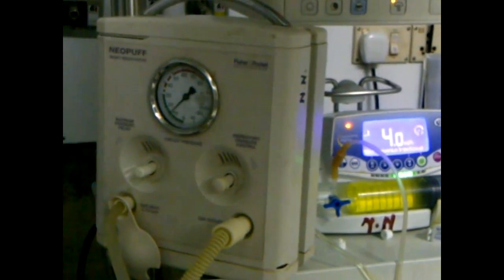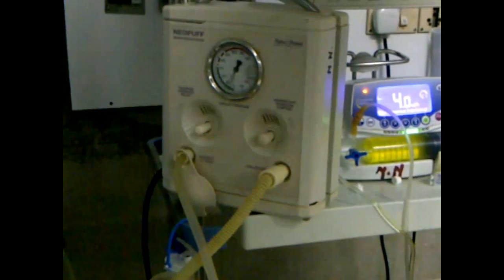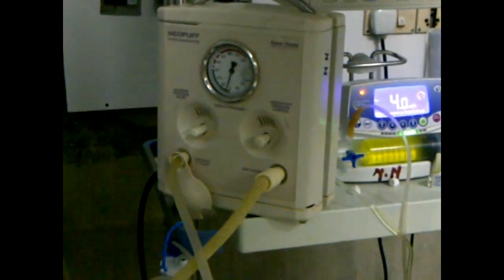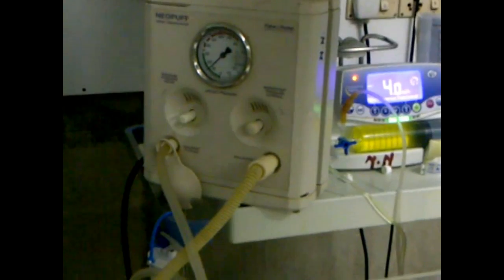On the top of this instrument you can see a manometer for monitoring pressures. Here we can see that the peak pressure is 20 and the end expiratory pressure is 5.